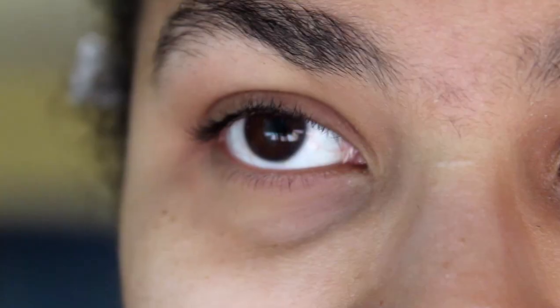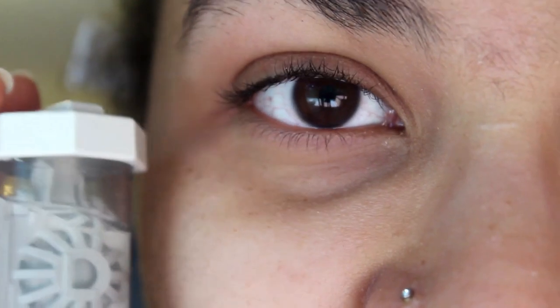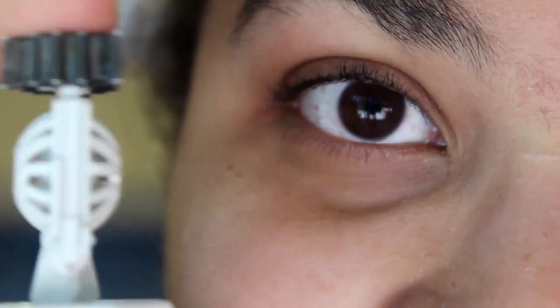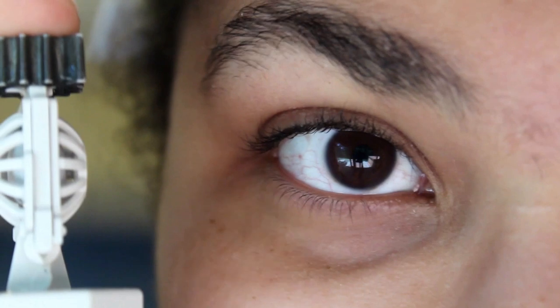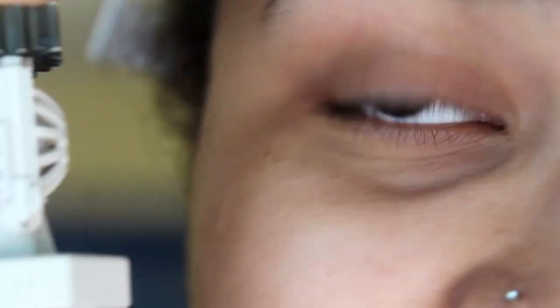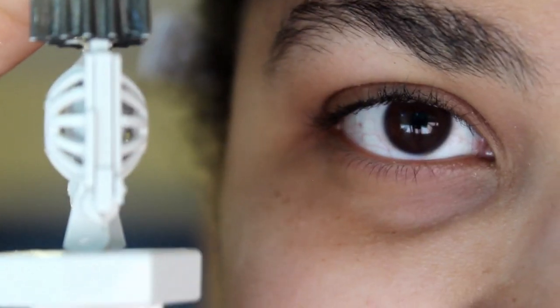So I'm going to show you how I put contacts on now. The reason why I failed so much the first time is because I can't see without my glasses. I have a prescription strength of negative 4.5 and 5.0, so if I don't have anything close to my eye to help me put these contacts on, I can't see. I'm going to try to stay as still as possible.